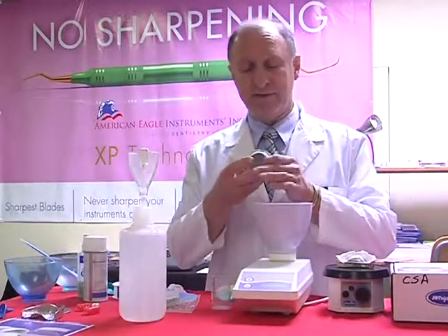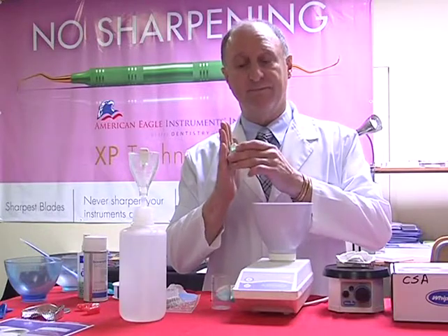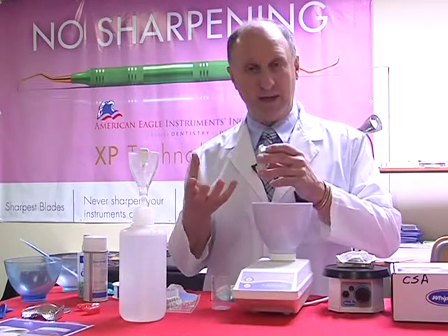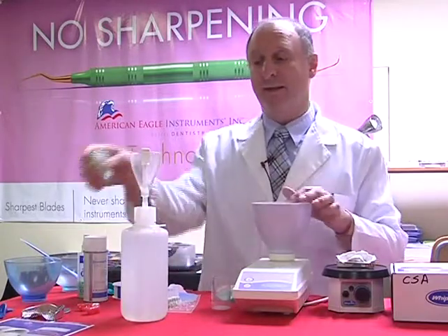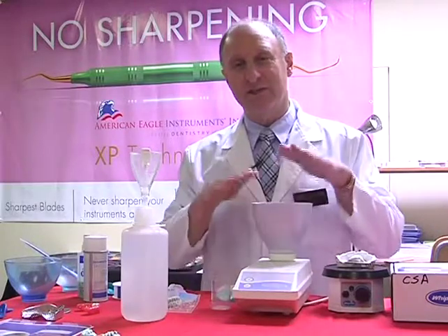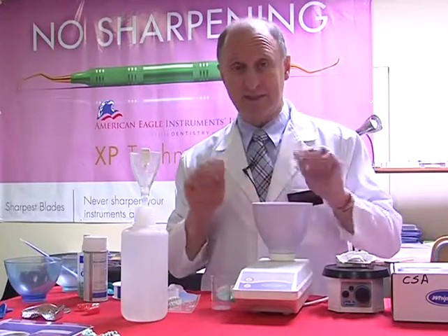Alternatively, there's something else called using slurry water. If we have a model trimmer in the office, we grind against the surface of the model trimmer and collect the grindings, which come in like a slurry, a sort of milky colored water. Collect that, and instead of using our regular water, use the slurry water to mix. It accelerates the stone. The only problem with that is there's a little more contraction and expansion, so it's changing the dimensional stability of the stone, whereas the table salt doesn't change that at all.